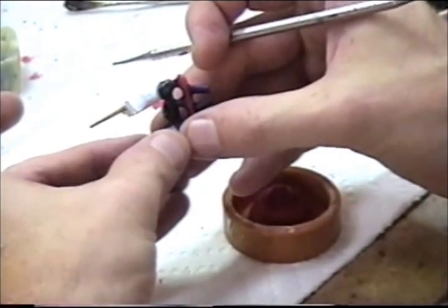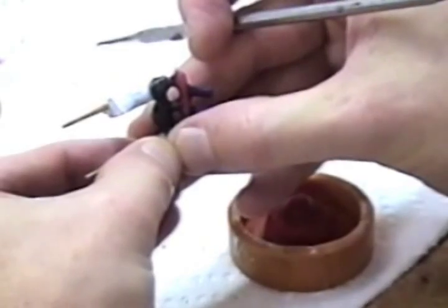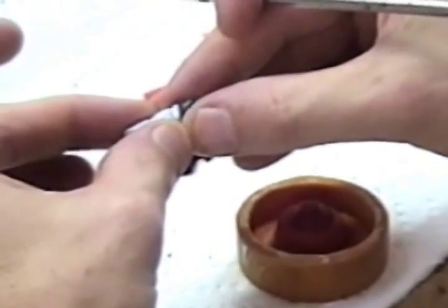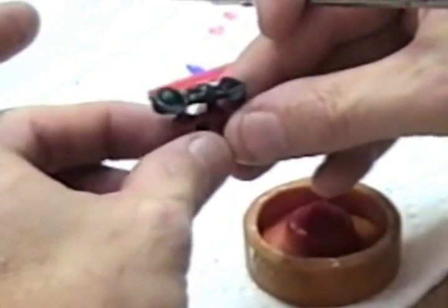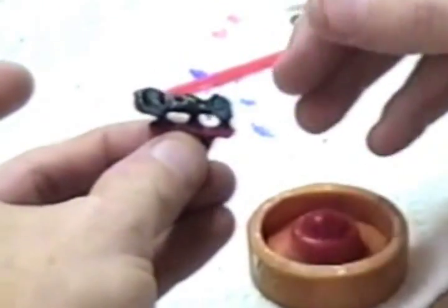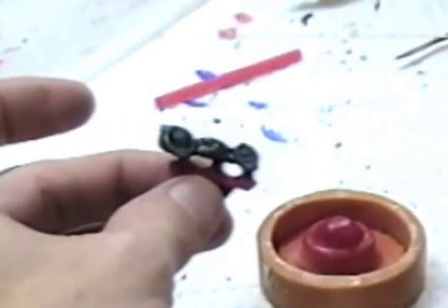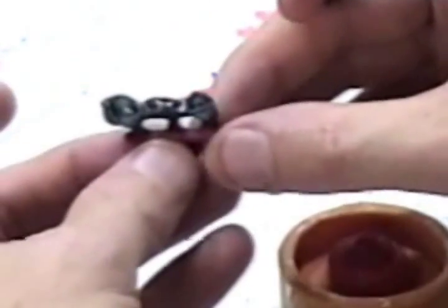Take one die, pop it off. Carefully go to the next and do the same. Seal the joint that was cut if there's still an open area. Flash it and seal it up.